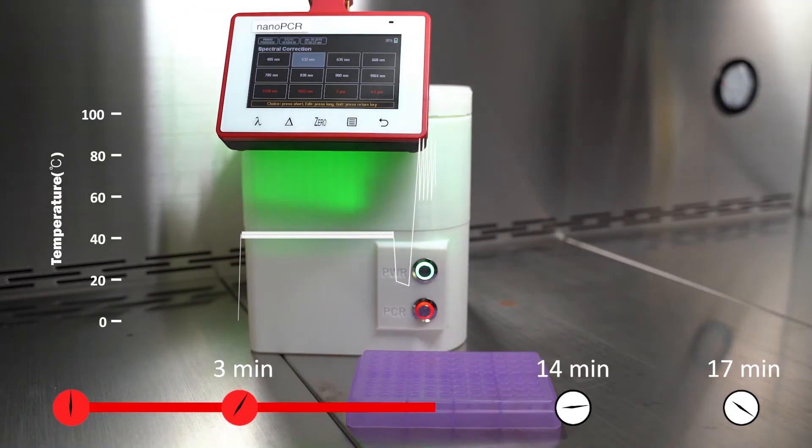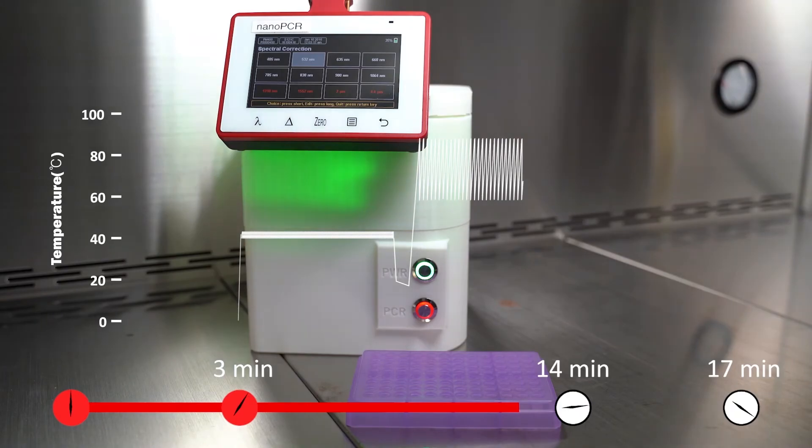Lastly, the nano-PCR retains the same sensitivity as the conventional RT-PCR. Clinical testing of 150 patients using this technology resulted in 100% accuracy in diagnosis, with 0% false positives or negatives.